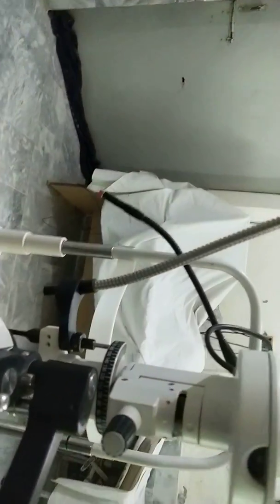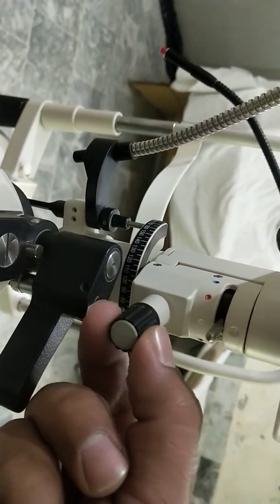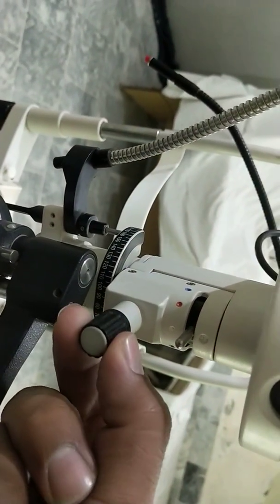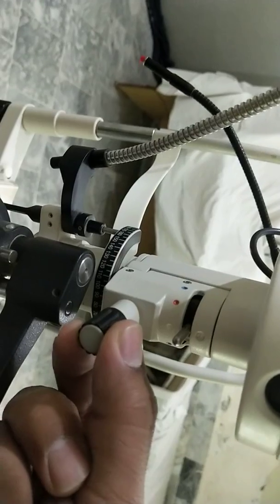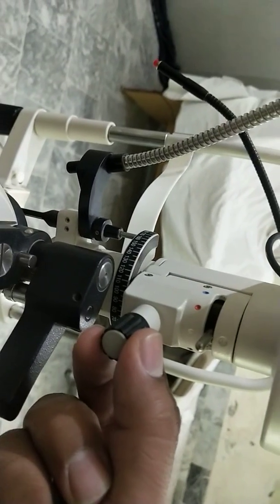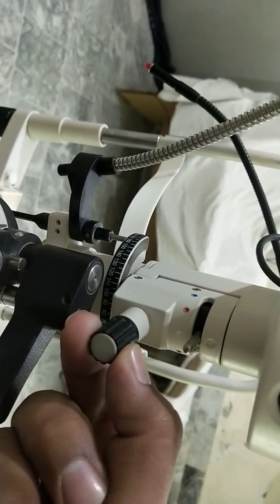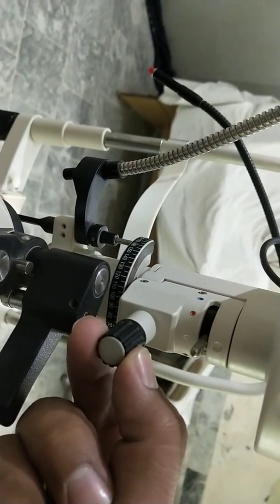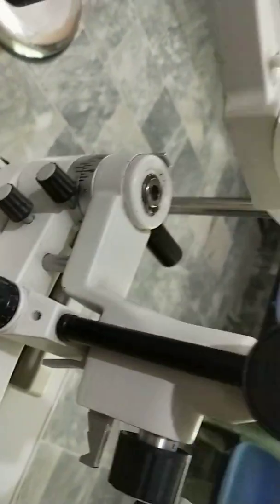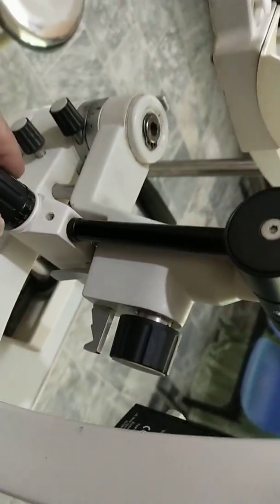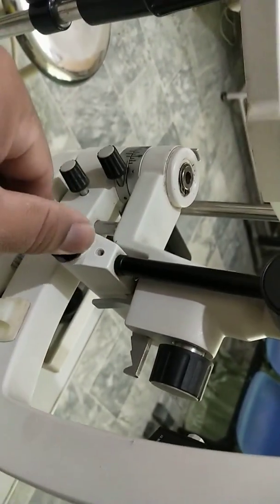And this button is for the vertical alignment of the slit and this button is for the horizontal alignment of the slit.